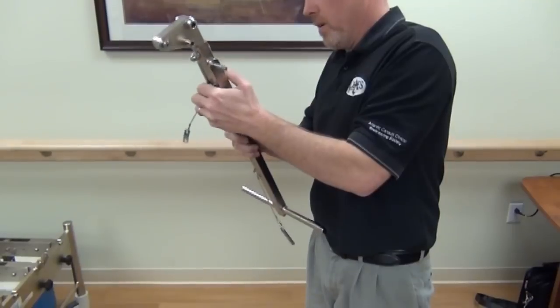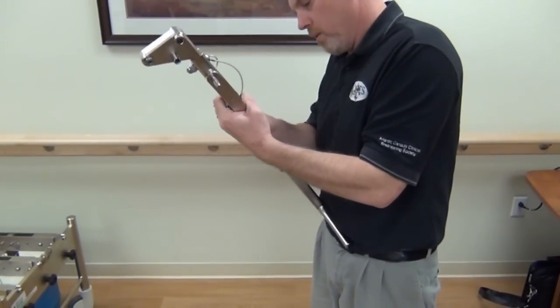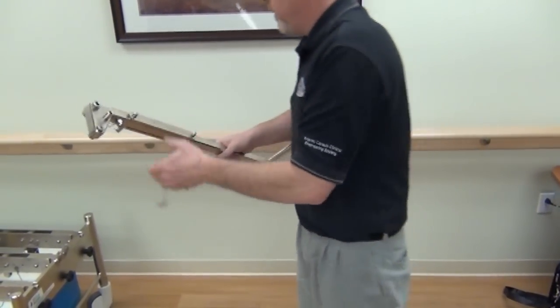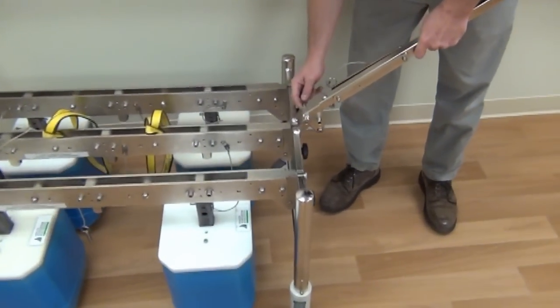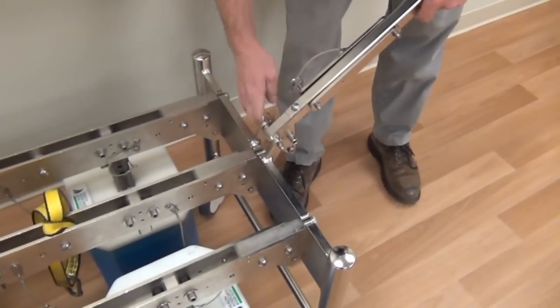Remove the ball detent pin from the fulcrum point and store the lever linkages on the handle shaft using the same pins. The lever handle is attached to the lift load by using the brackets on the end frames and a pin. The lift load can be maneuvered by pushing or pulling the lever handle. There is significant momentum when the lift load has the weights attached, so use caution when transporting the lift through a facility, particularly on ramps and corners.